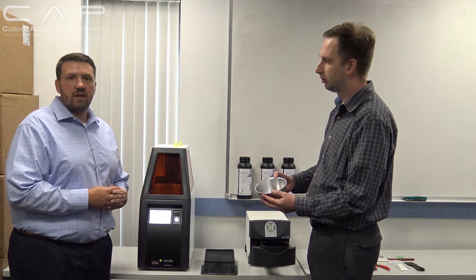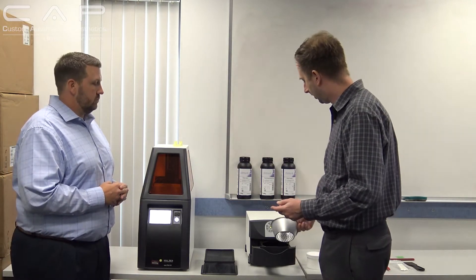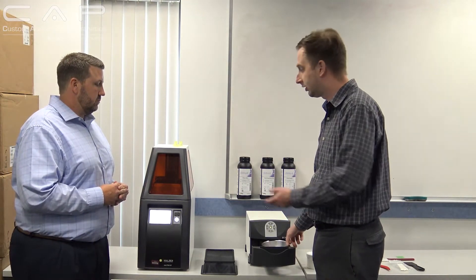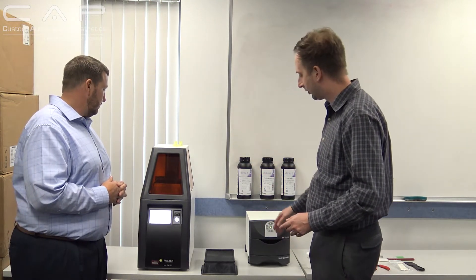I put all six of them in there when we did that — just stack them in there. Five minutes on each side. So 26 minutes to print, maybe five to ten minutes of post-processing, another ten minutes in the cure unit, and you've got six cases out the door — and this thing's printing more cases that whole time. Absolutely. It's really, really impressive.